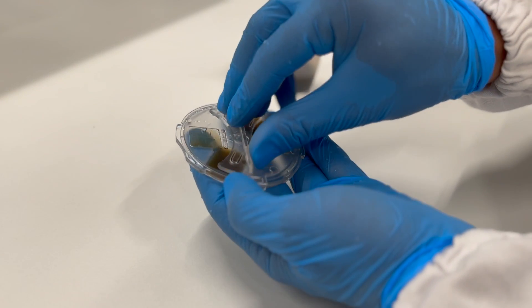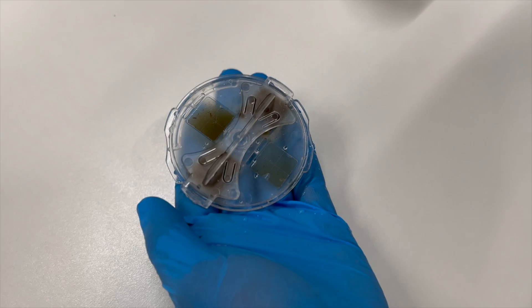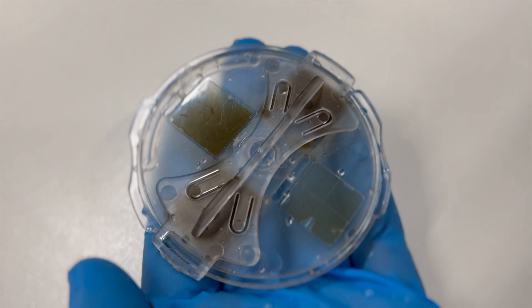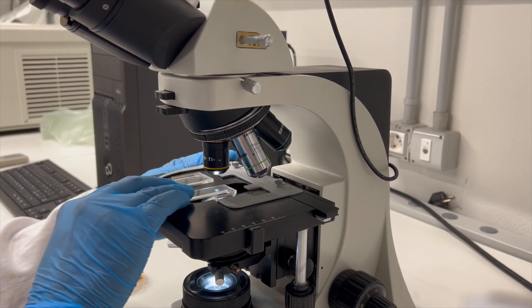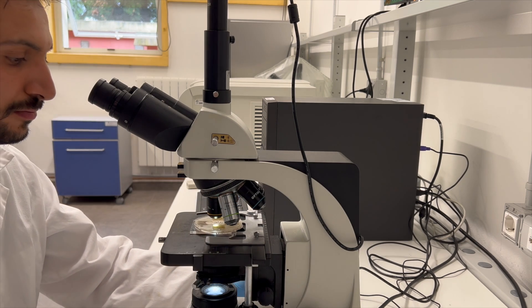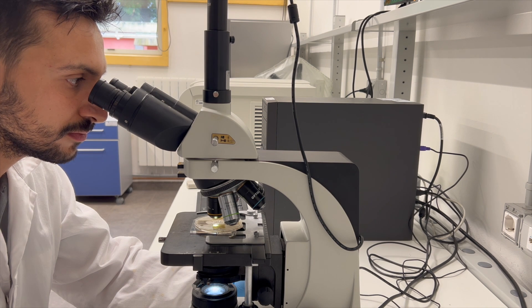Rotate the device to the reading position and remove the rotation key. Place the MINI FLOTAC on the microscope, affixing it with the supplied adapter. Examine each reading chamber at 10x magnification and count all targeted parasitic elements using the tally counter to help record results.